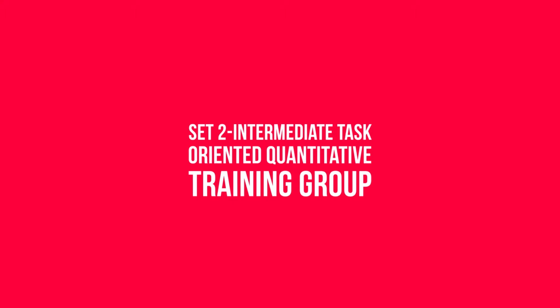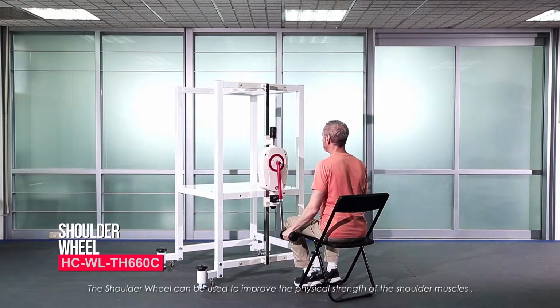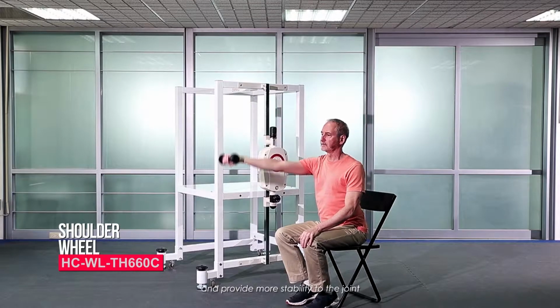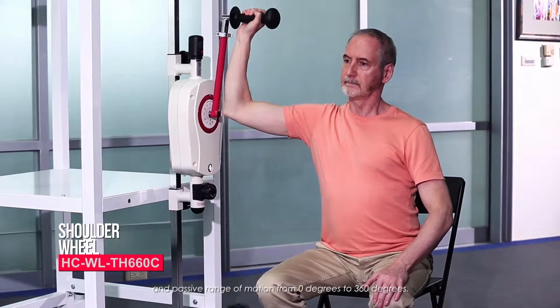Set 2. Intermediate Task-Oriented Quantitative Training Group. Shoulder wheel. The shoulder wheel can be used to improve the physical strength of the shoulder muscles and provide more stability to the joint. The goniometer on the shoulder wheel can be used to measure both active and passive range of motion from 0 degrees to 360 degrees.